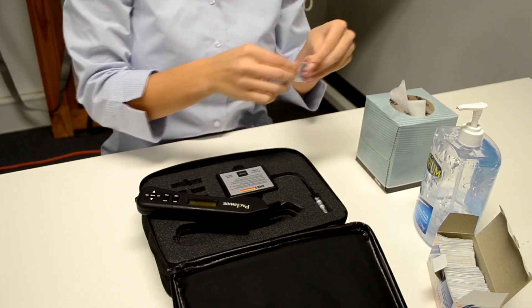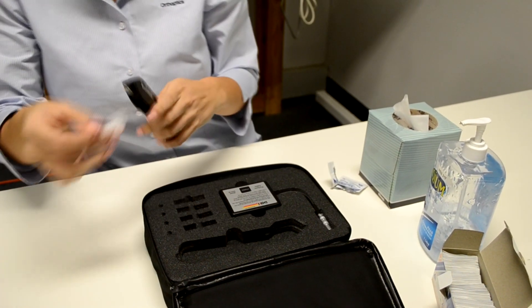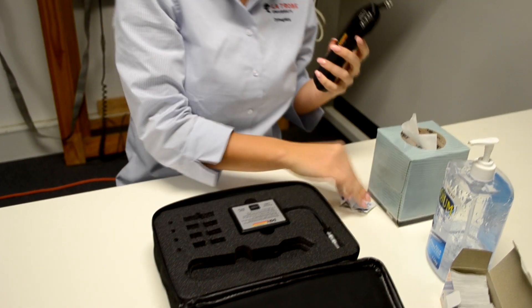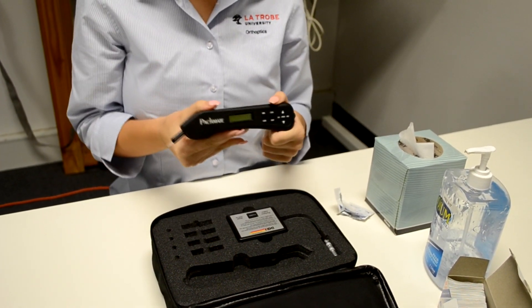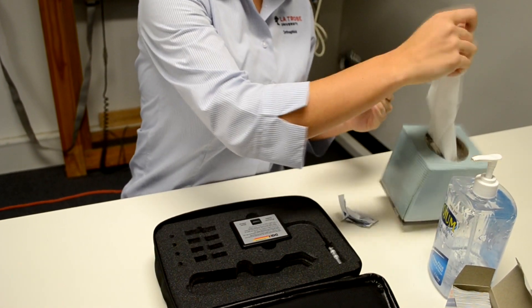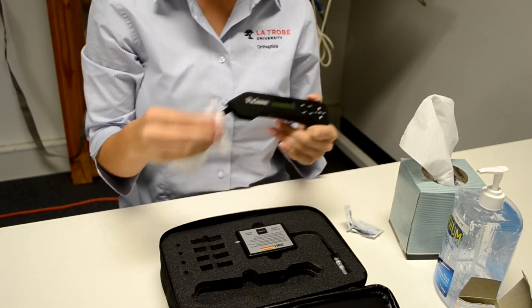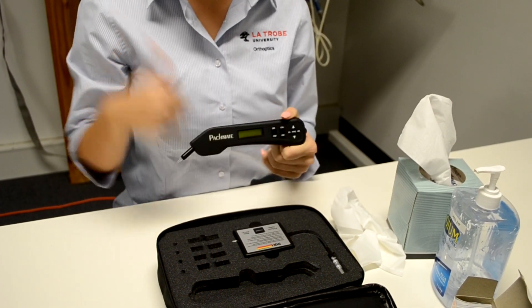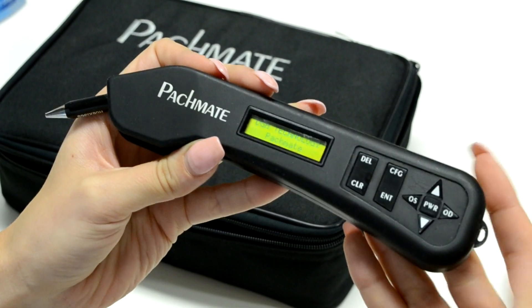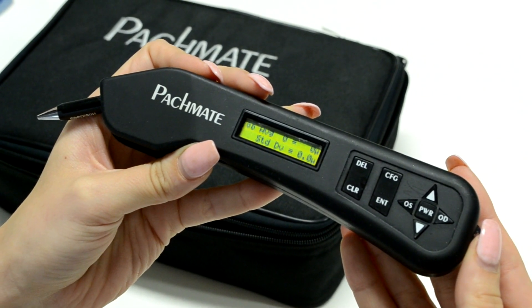Before the next patient is called, the pachymeter probe should be cleaned with an alcohol wipe so that no cross-contamination occurs between patients. If there is enough time you can leave the probe to air dry; however if needed for the next patient, a tissue can be used to wipe it dry so that alcohol burns are avoided. After cleaning, press the power key. A beep will sound and the pachymeter will display the battery status. It is now ready to use.